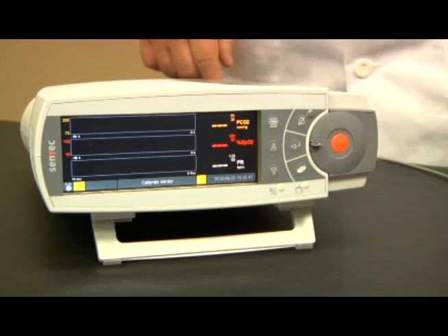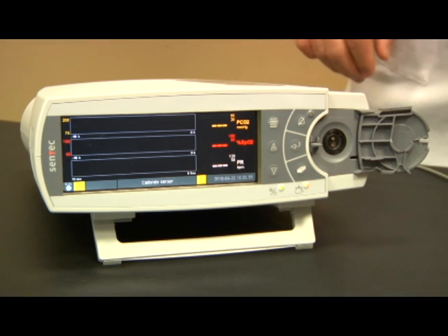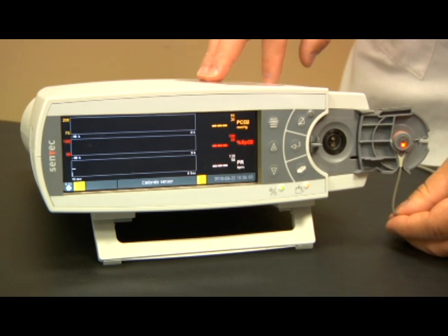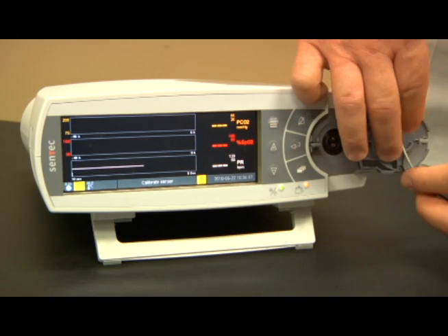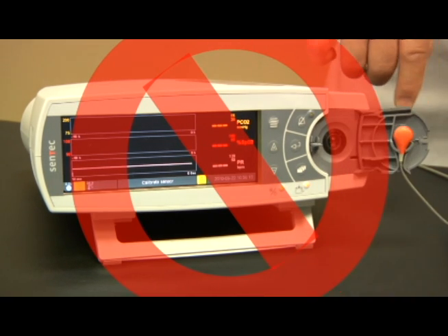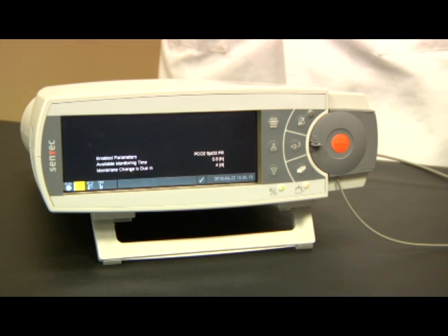Open the docking station door by lightly pressing on the front of the door latch from above. The door will spring open. Slide the sensor into its cradle, noting that the sensor should be oriented with the red light facing towards you. Failure to perform this correctly can result in damage to the door mechanism and/or the sensor. Close the door and when the sensor reaches the set temperature, the message "Calibration in Process" will appear.